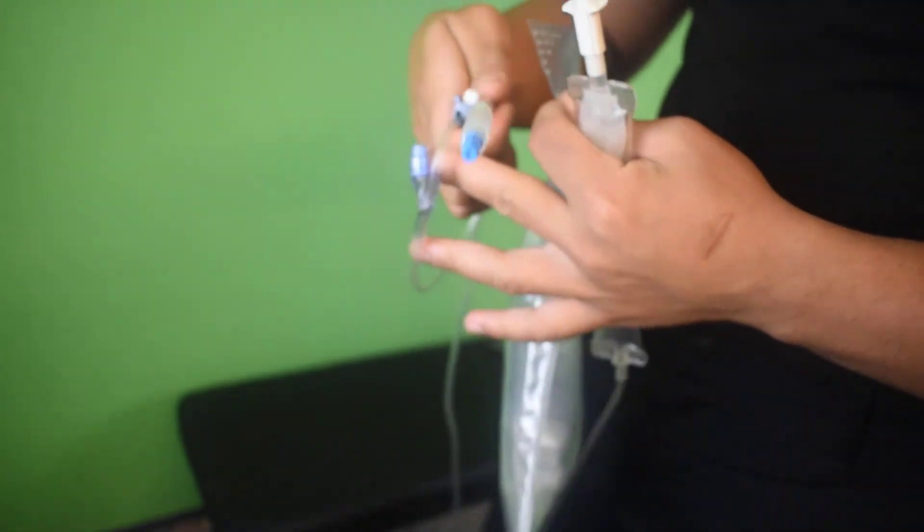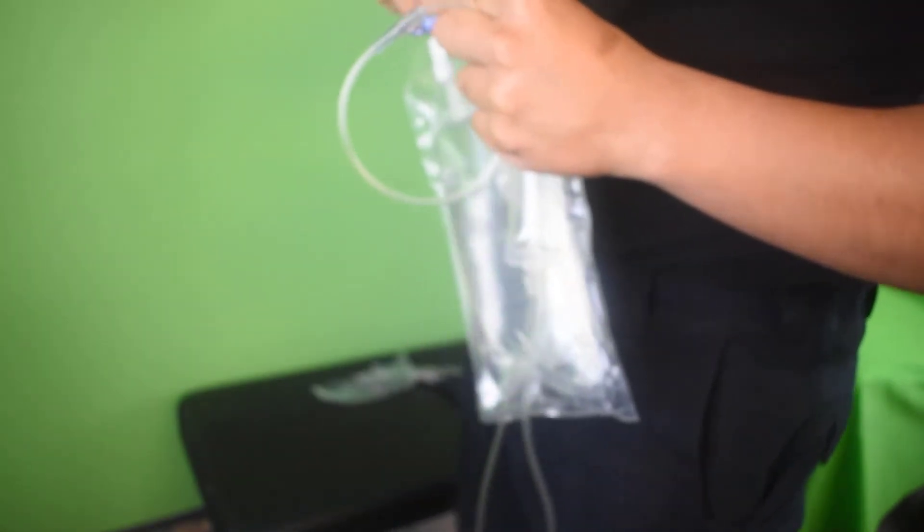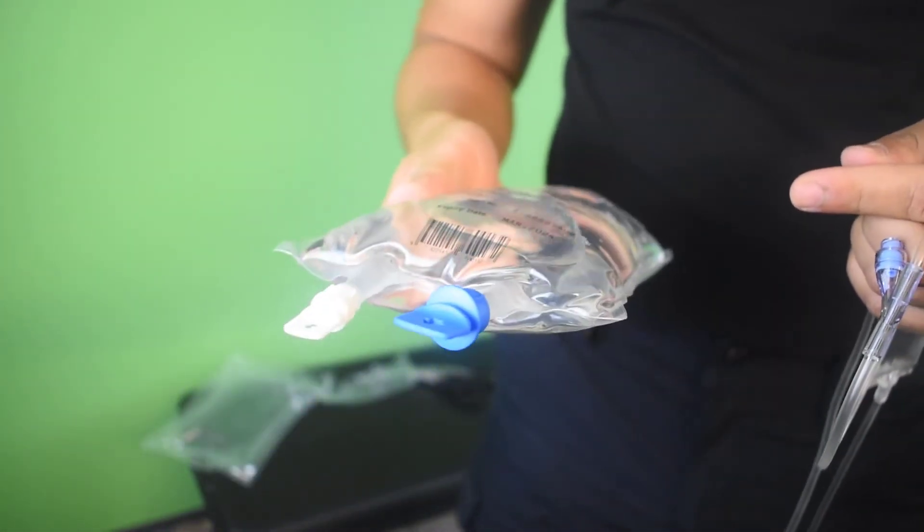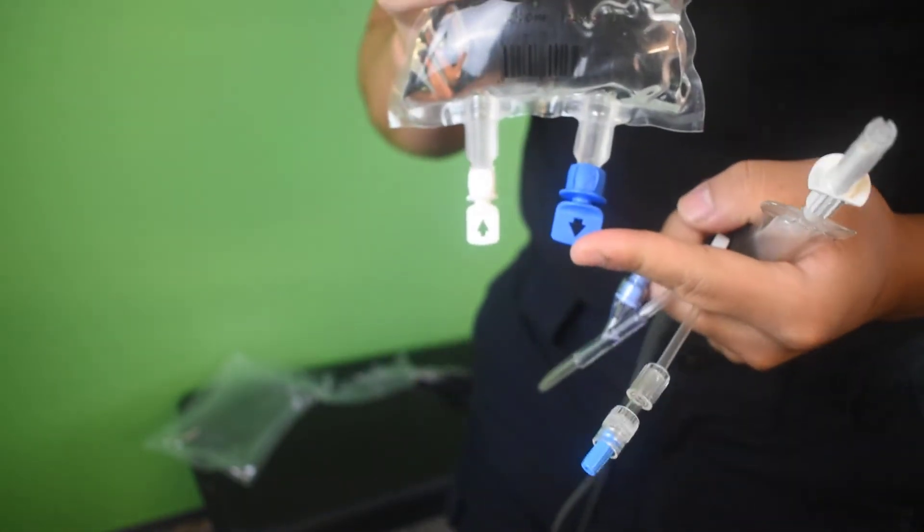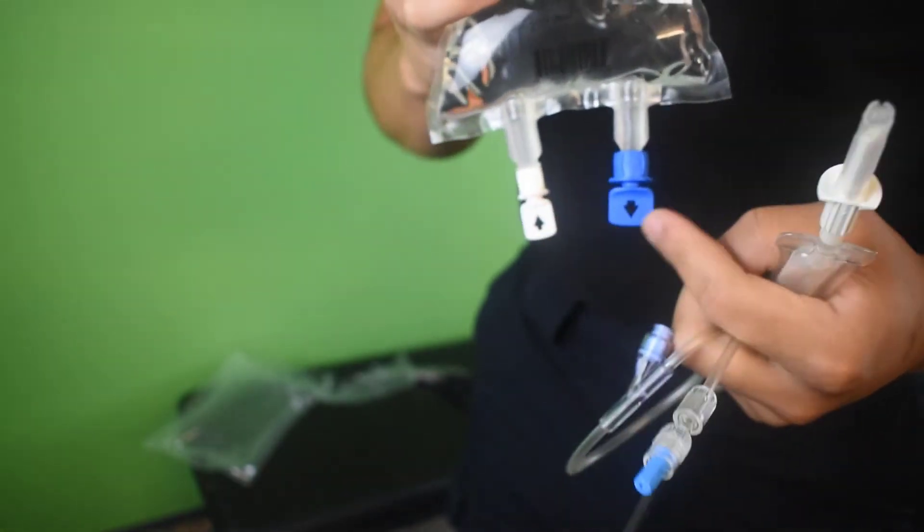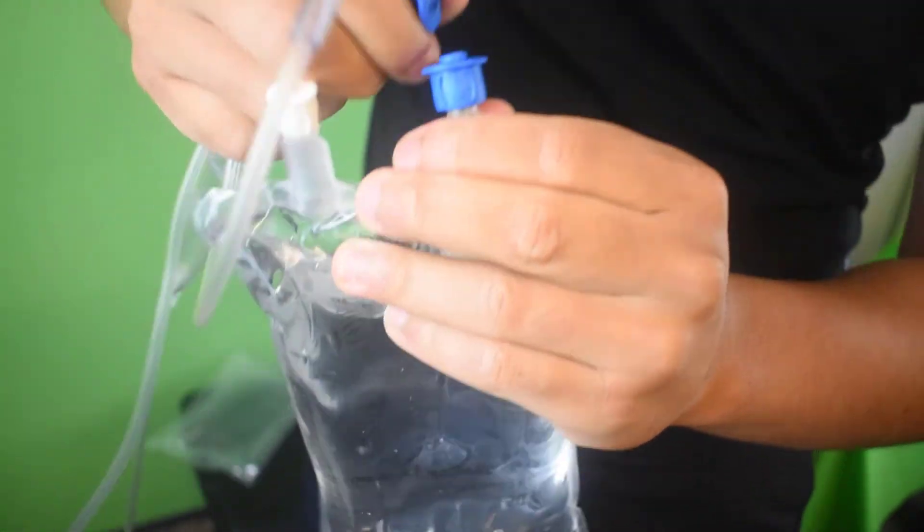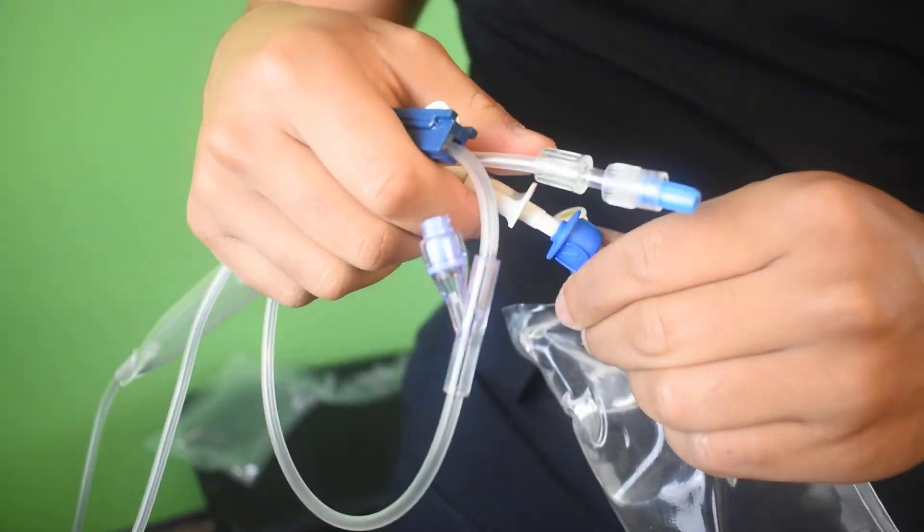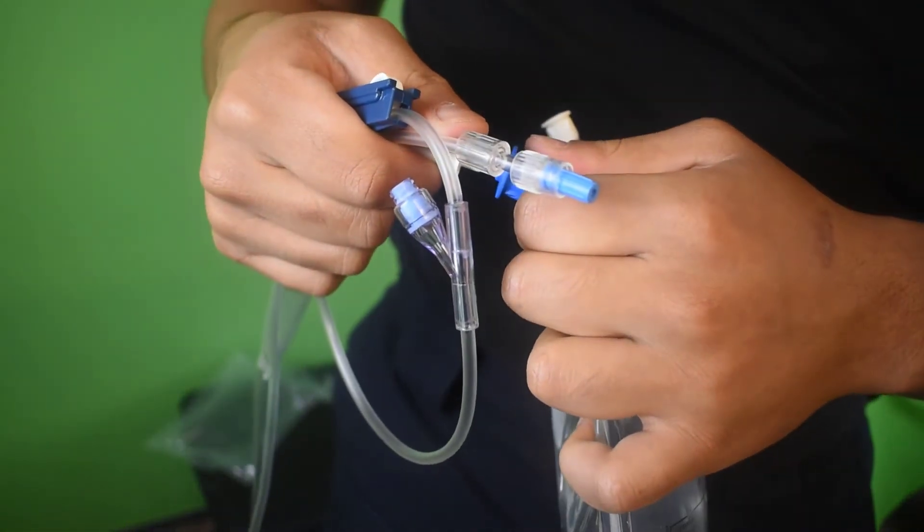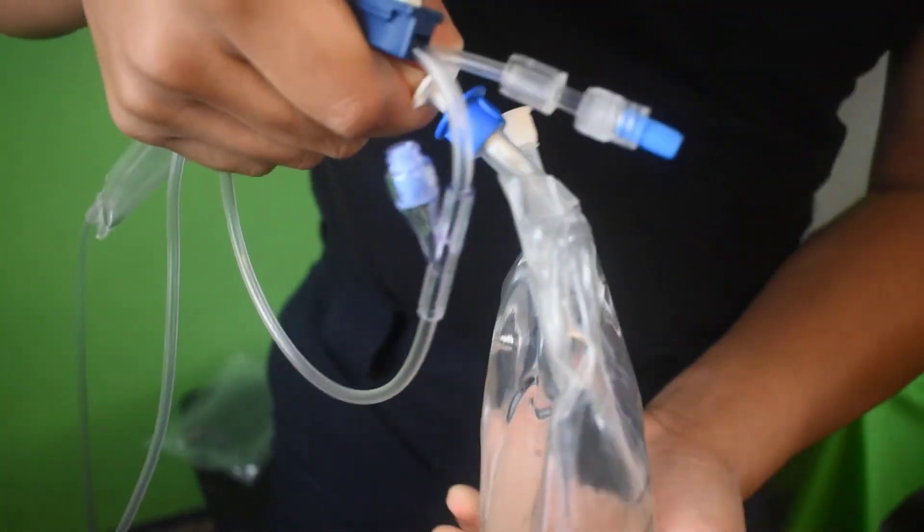Now that I know that this is the right medication, I'm going to open this up and I'm going to start entering it into the drip chamber. Just letting you guys know, once you check with your partner, I recommend just taking it out of the bag because then you'll be holding this and it can get a bit difficult. So this has two things. In the normal ones that you use in the hospital, it only has one, so this is a bit more confusing. But generally the one that's pointing out is the one that you stick the white tubing in, so the blue one. I'm not too accustomed to these ones, but we'll see which one goes in. It's the blue one. So it's the blue one here for all purposes. All you need to know is the ones in the pre-hospital setting will have a blue twisting that you pull off. So yeah, it's blue on blue. So you push that in.